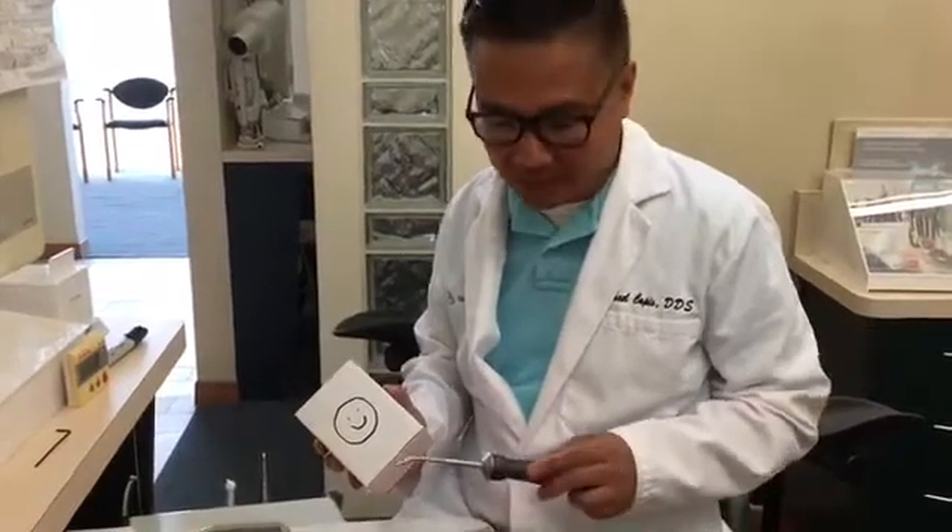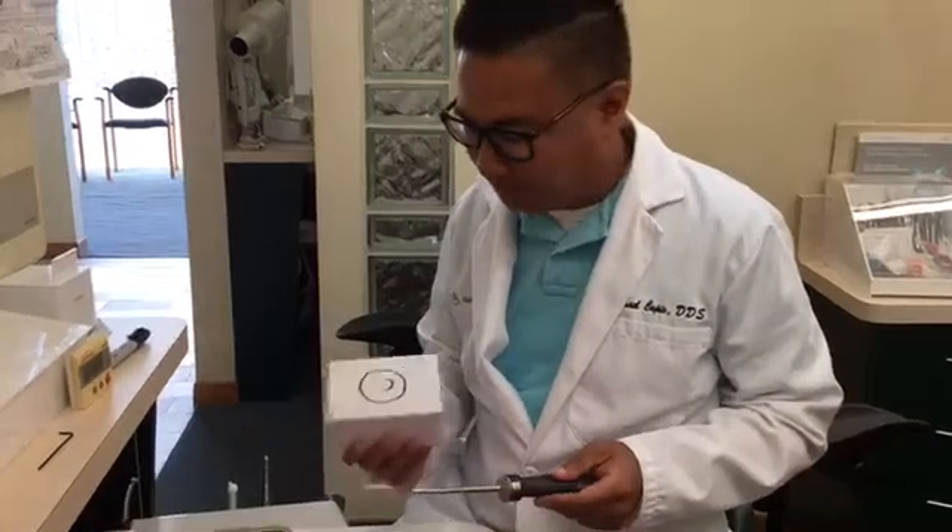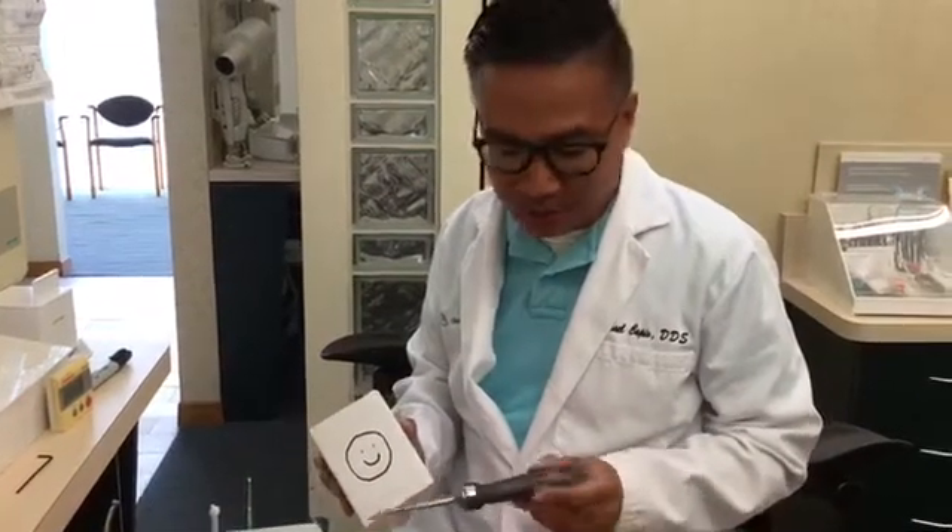So, after all that, it was pretty straightforward to use this thing. I thought that this video would be helpful for anybody trying to figure out how to use this BioHorizons AutoTac system.